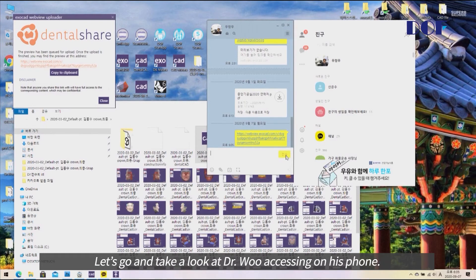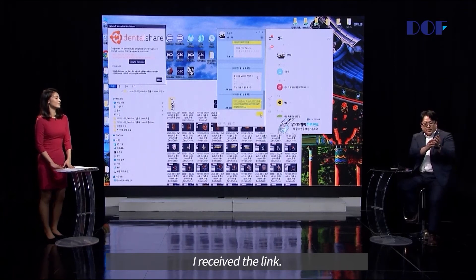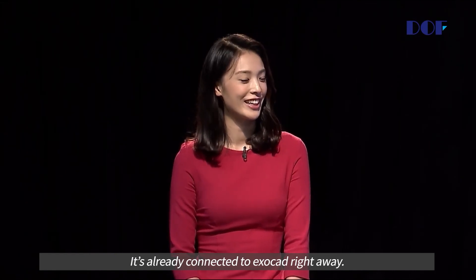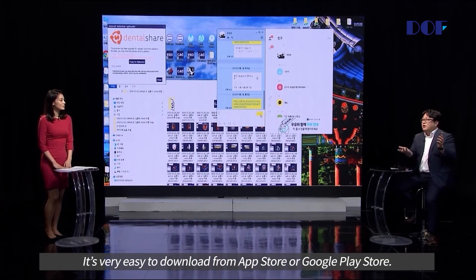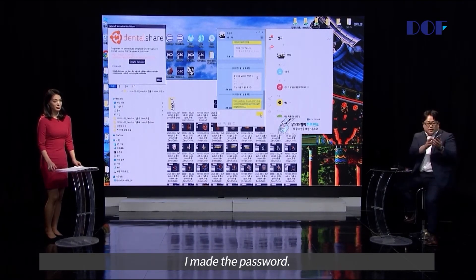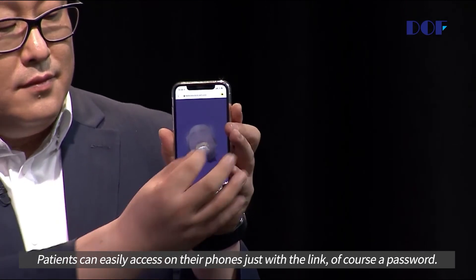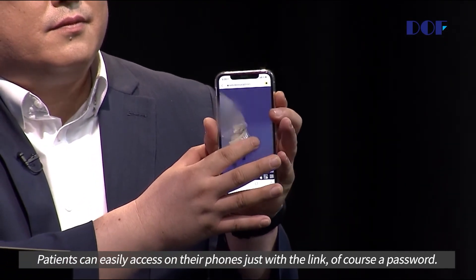Let's take a look at Dr. Wu accessing the link on his phone. He received the link, and his mobile phone already has the Exocad web view application installed, so it connects to Exocad right away. That is a free application — very easy to download from the App Store or Google Play Store. He enters the password. Patients can easily access the data on their phones just with the link and a password.